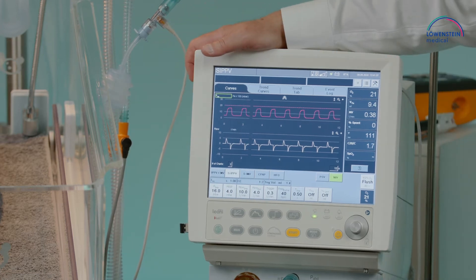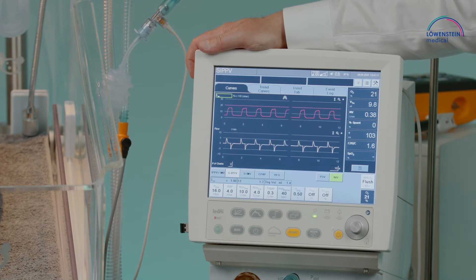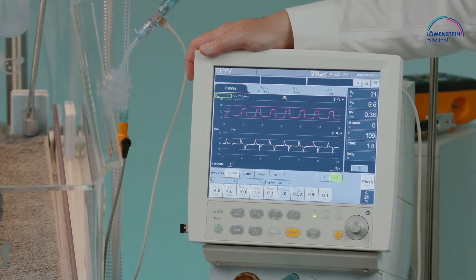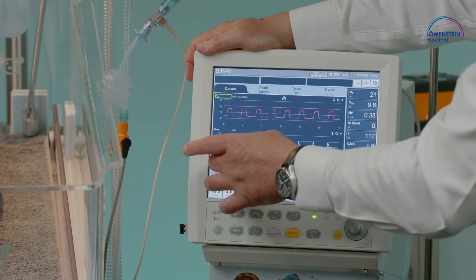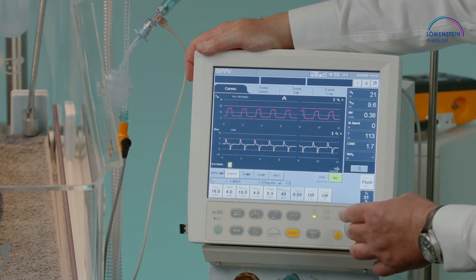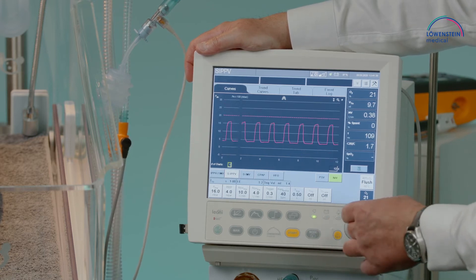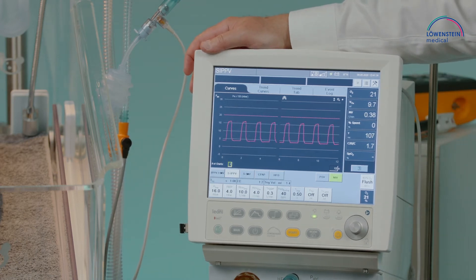There is also an option to show the abdomen sensor graph if that option is present. We also have the opportunity to increase the number of graphs displayed on screen, or reduce it to only one graph with higher resolution across the whole screen.